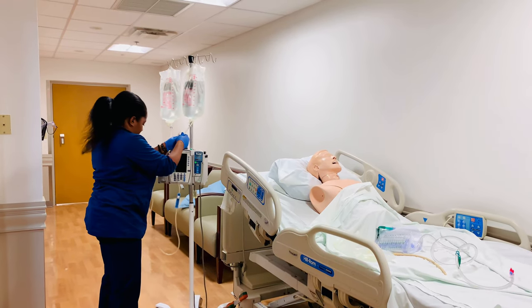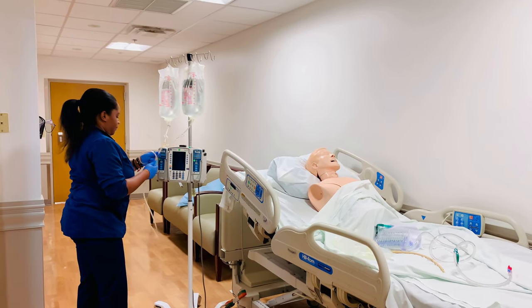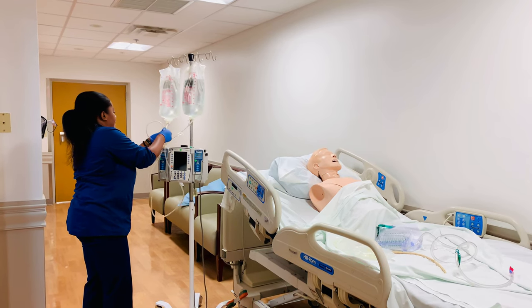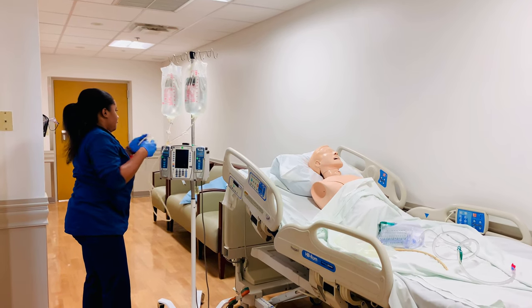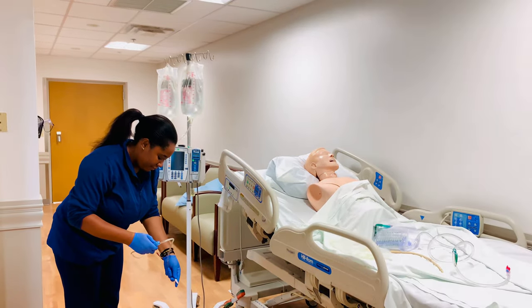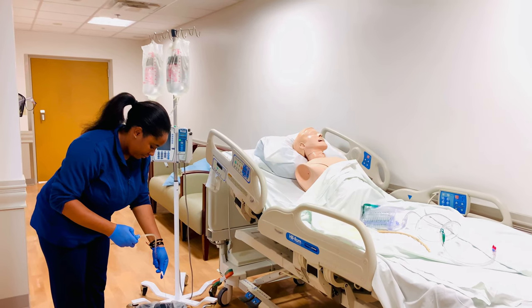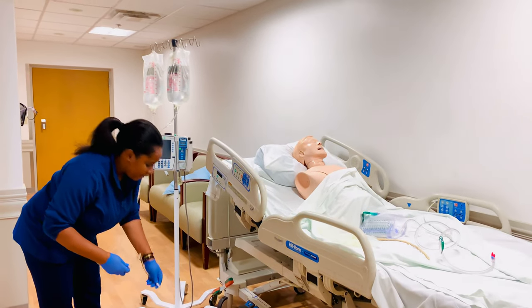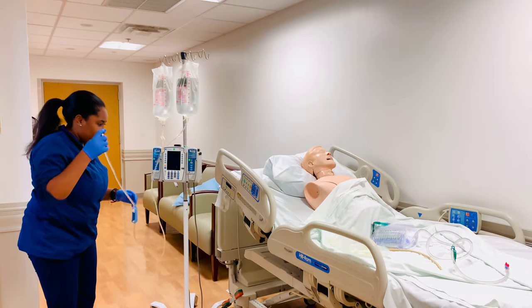I'm going to prime my line one bag at a time. I'll unclamp the first one — there we go — then clamp it back, and unclamp the second one. Usually you want to prime it nice and slow. So now the line is nicely primed.